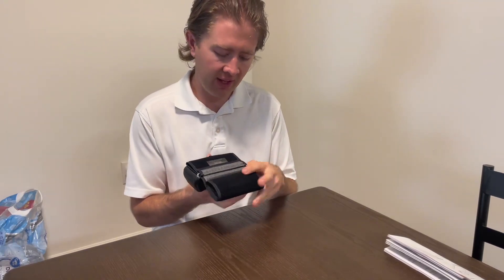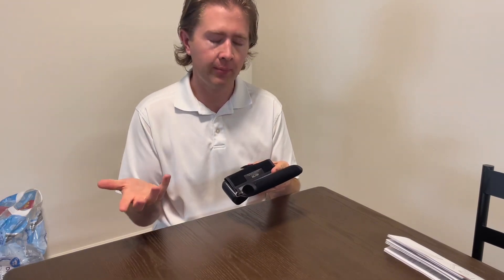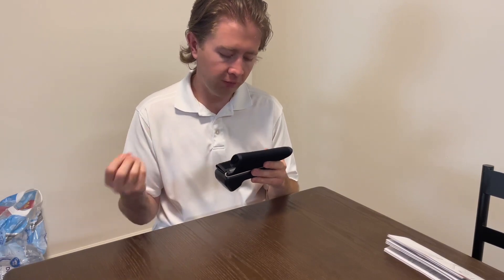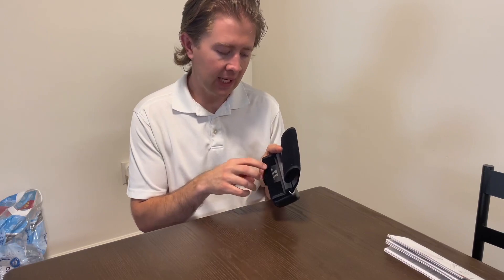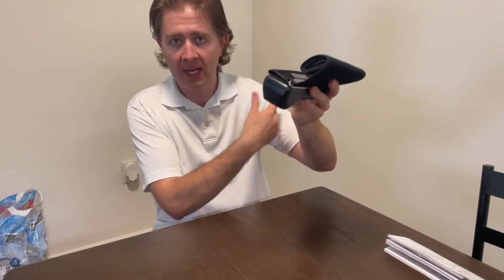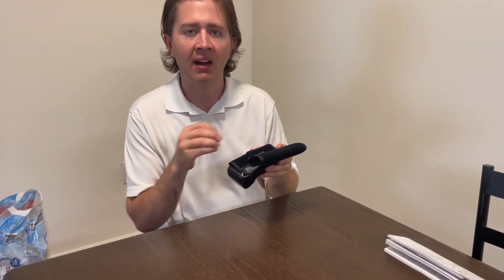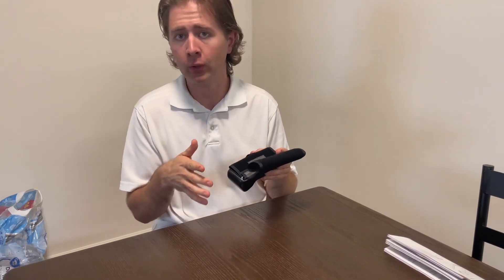For example, this is a pretty decent size one, but if your arm is not within 22 to 42 centimeters — which is right here on the tag — you would need a flexible tape measure to measure your arm circumference. If it does not fall between those two amounts, then know that this is not going to work for you.